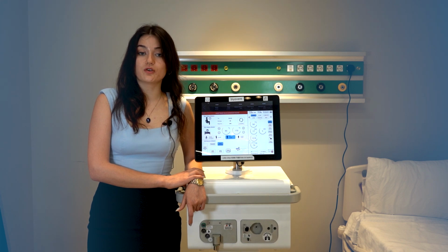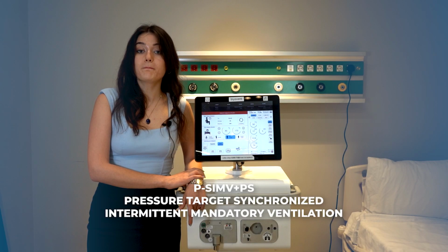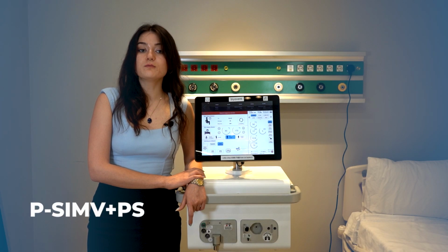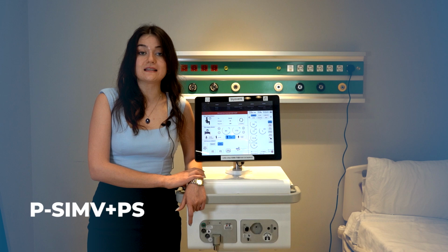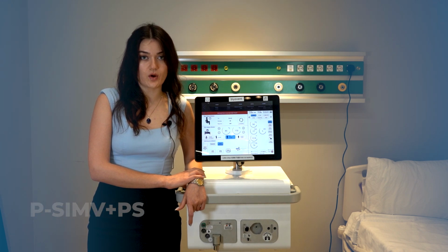Another mode under pressure control modes is Pressure Target Synchronized Intermittent Mandatory Ventilation plus Pressure Support Ventilation Mode. This mode provides pressure support to assist the patient's breathing while delivering mandatory breaths at fixed intervals. This promotes natural breathing while providing controlled ventilation. It combines pressure-targeted, time-cycled breaths with pressure support for spontaneous breaths between mandatory ones. It is also pressure-targeted and time-cycled, and it is patient or ventilator triggered. It provides pressure support for spontaneous breaths between mandatory ones.